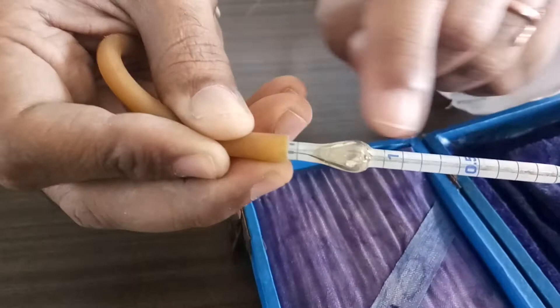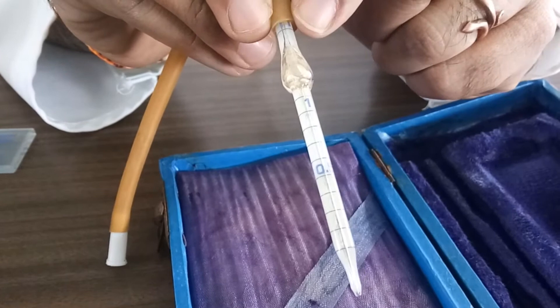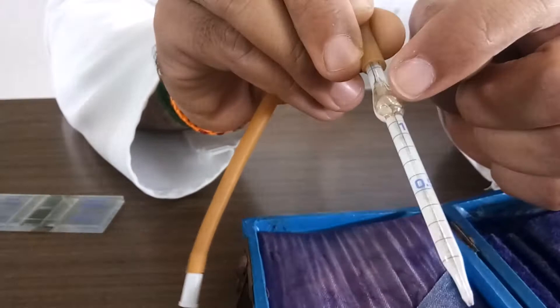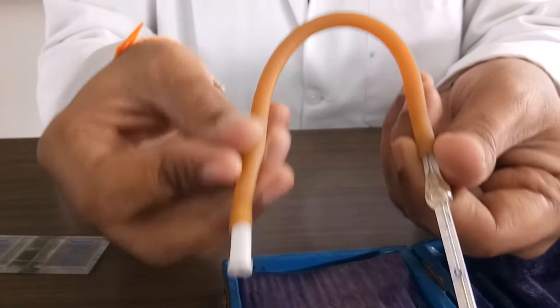Marking of WBC pipette: 0.5, 1, 11. This is the identification of WBC. Second is the bore size. Inside bore you can see how broader. The particular bulb is narrow. Bead, inside the bead is white color. The mouthpiece is again white. This is the identification of WBC pipette.